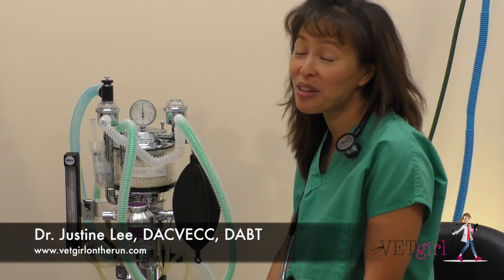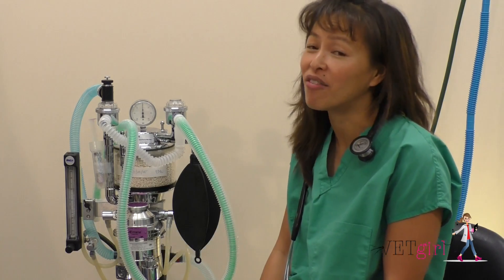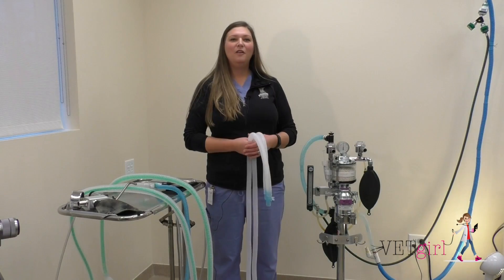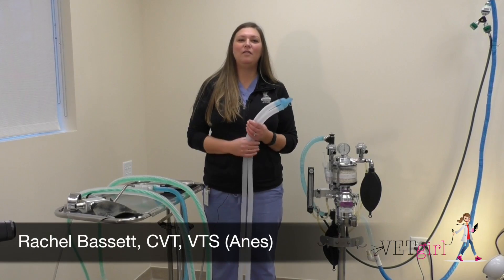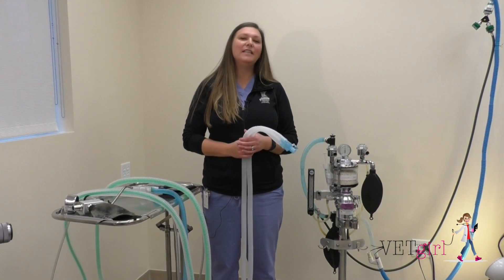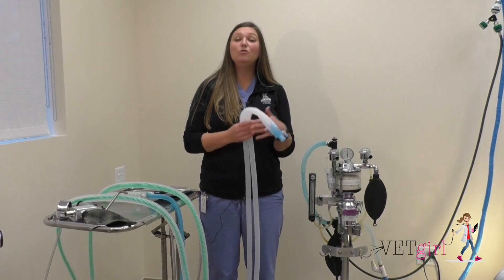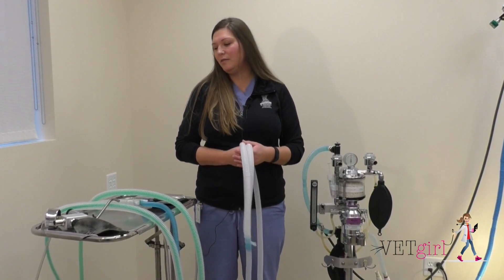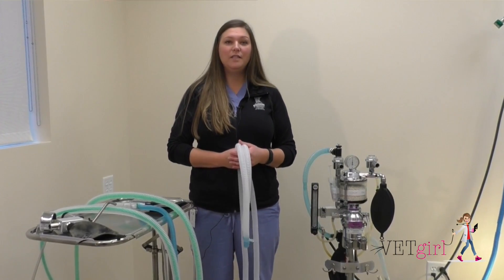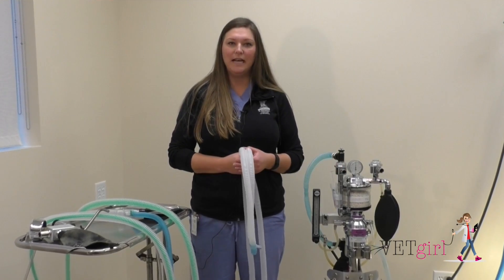Hi, I'm Dr. Justine Lee and I'm super excited to do this video with Rachel Bassett, who's a certified veterinary technician and a VTS in anesthesia. Today I want to go over our breathing systems. There's a variety out there on the market, and many clinics have a variety in-house as well. There are really two different breathing systems: re-breathing and non-re-breathing. I want to go over the difference between those systems, how they hook up to the machine, and how to perform the leak test on them.